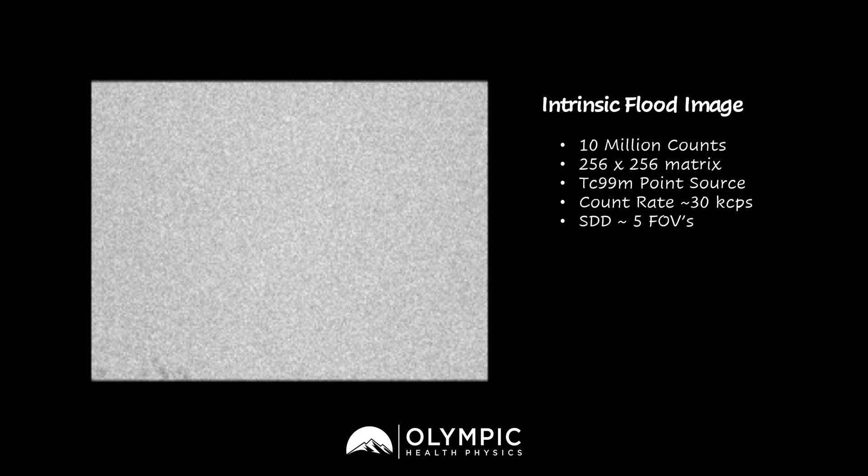Hopefully you've all had a chance to see where the artifact is. If you can find the artifact — just kidding, you can't raise your hand, this is a YouTube channel — you should see it down here in the bottom left corner, and you can see some non-uniformities within the image.